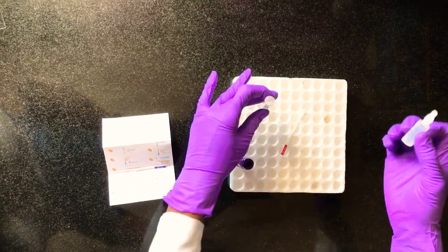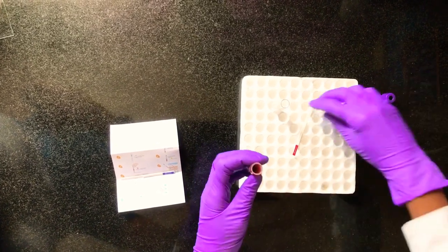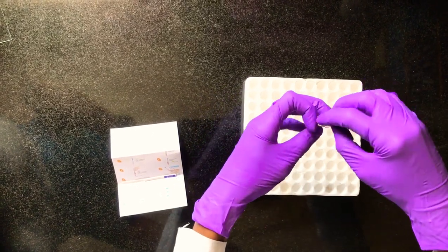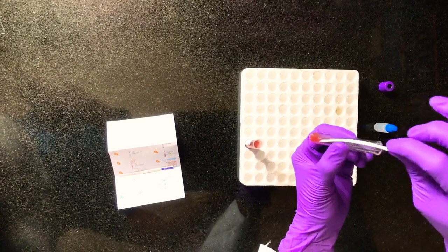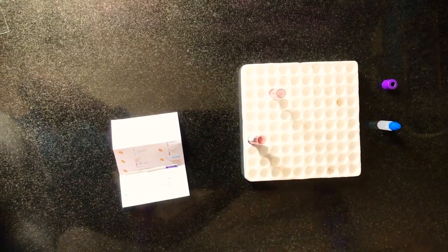To the test tube you need to add three drops of buffer. Using a blood collector strip, gently take a drop of blood from the sample and mix it with the buffer solution. You need to mix it for seven seconds.